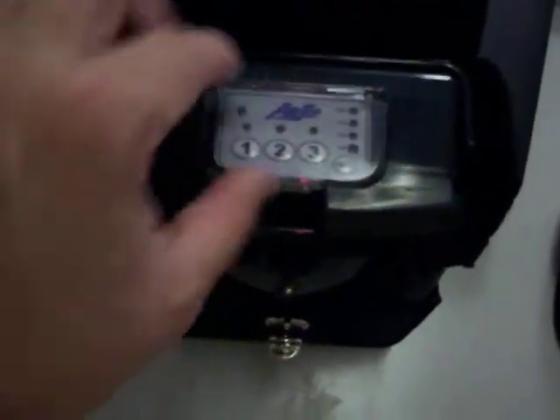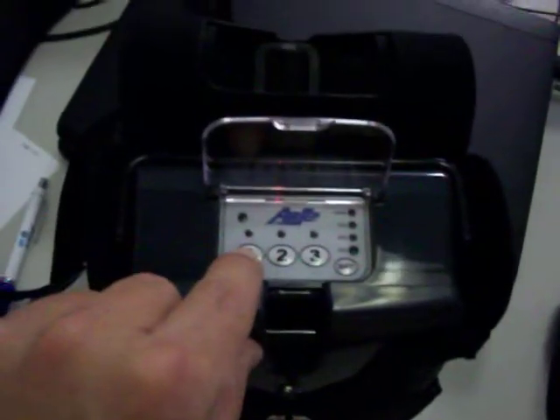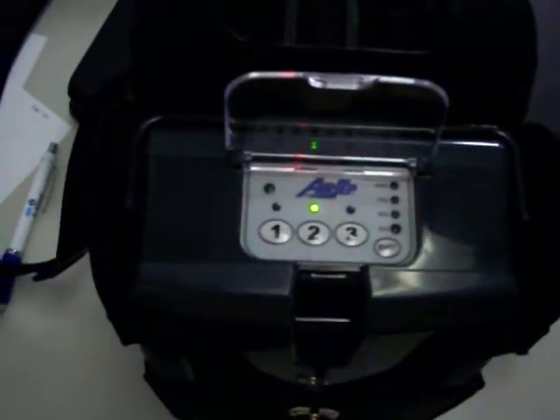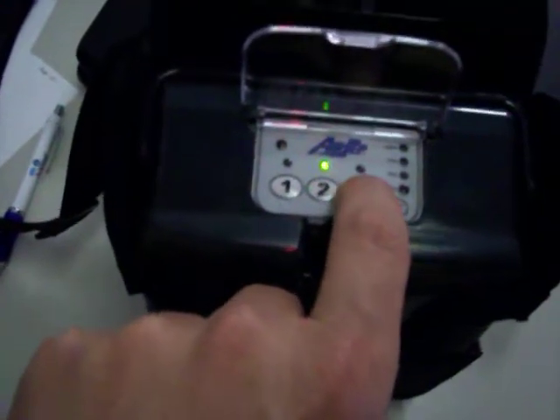To use this particular product, it's very simple. All you've got to do is push and lift up on the plastic piece, then push the setting. This is one liter per pulse — a bursting of oxygen at one liter per minute. Then you can turn it up to two. You just basically have to push a button and it'll give you two liters per minute, and then three liters per minute. This is a little nozzle where the O2 — over 90% purity — will come out, depending on humidity and altitude.